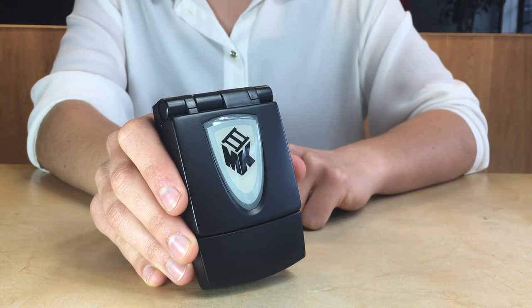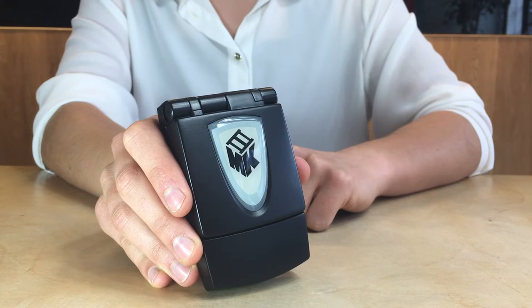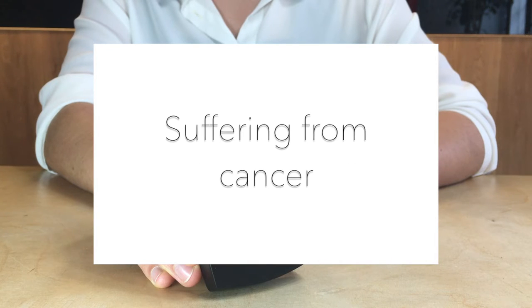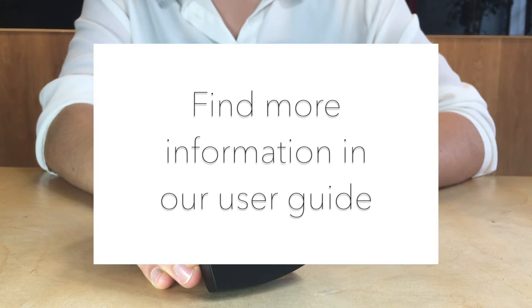This video will show you how to set up the MK3 Combination Electronic Muscle Stimulator and TENS unit and start your treatment with the right settings for you. It is important to note that the device should not be used with any of the following: pacemaker, defibrillator, while pregnant, or suffering from cancer. Please contact your prescribing physician before use. Please read the user manual for more information.